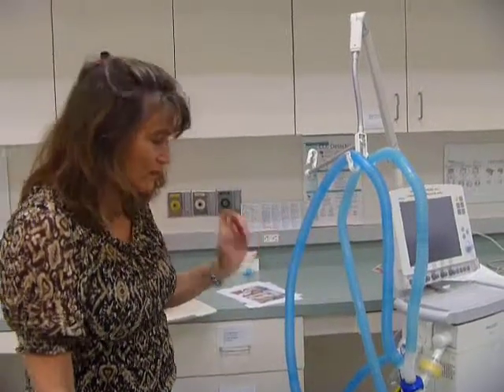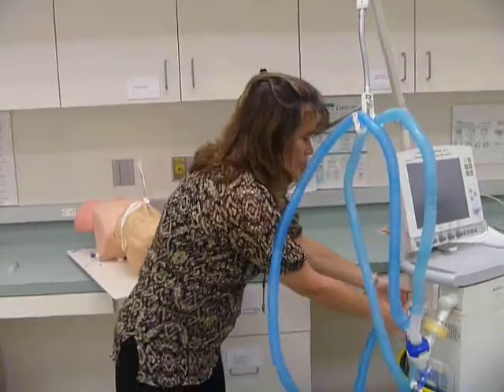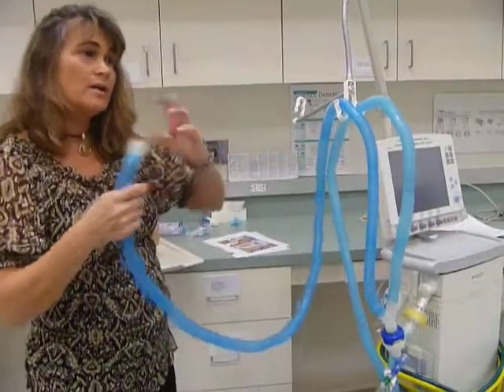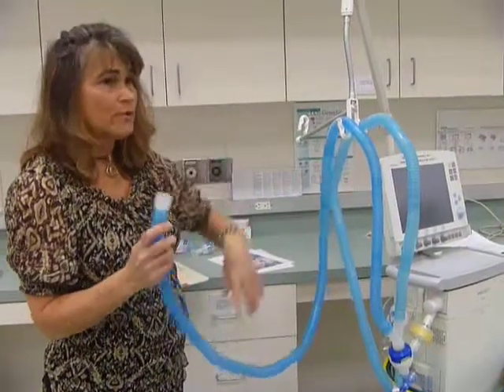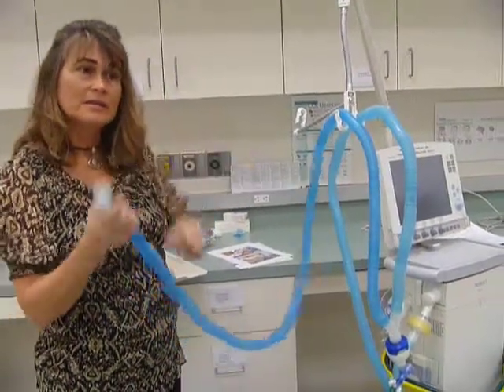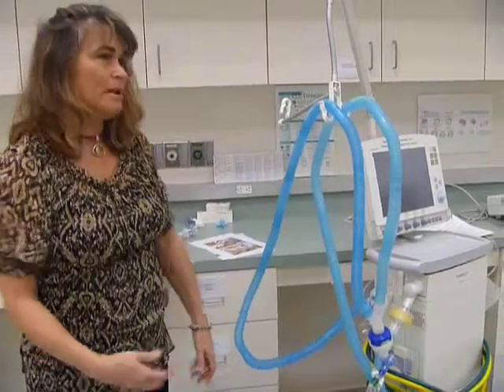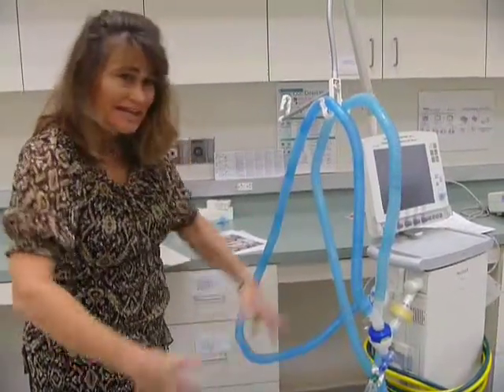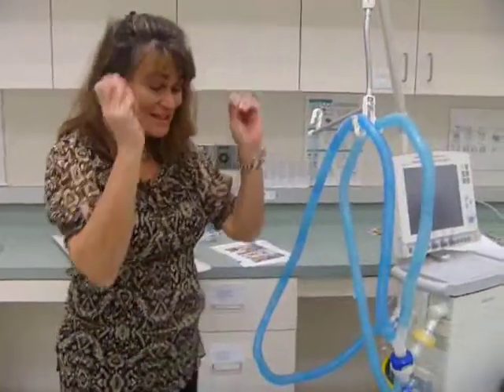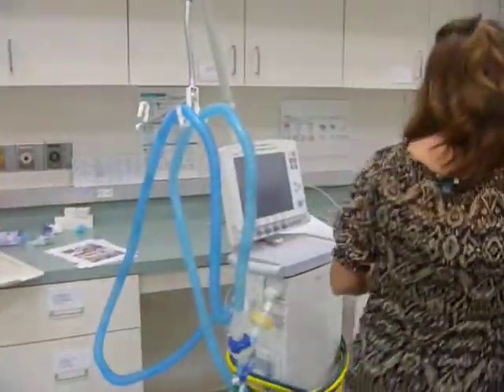With the adults, if a tubing drags on the floor, just change the filter. Like let's say this dragged on the floor. You can get alcohol. Alcohol wipes are in every drawer in every room in the hospital. Keep a bunch in your pocket. And you can alcohol the end, let it dry, and then you can use the circuit. But I mean, if the floor is wet and full of blood and it lands in something like that, throw the circuit out. But if it briefly touches, you pick it up, you have to alcohol it before you connect it.